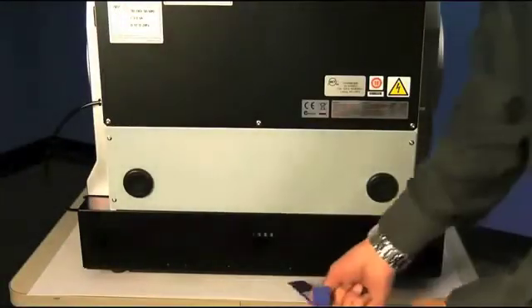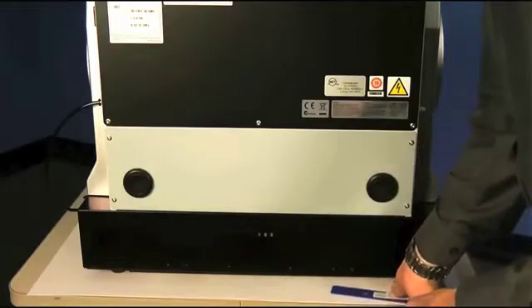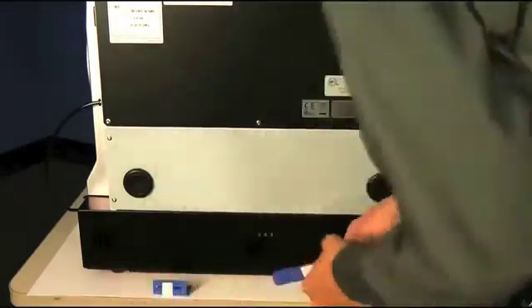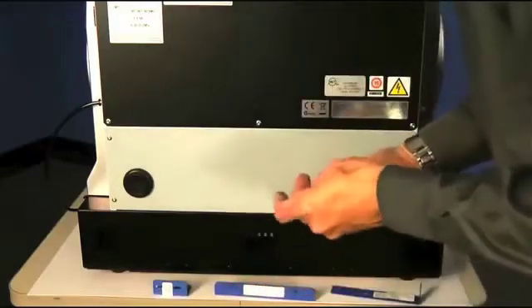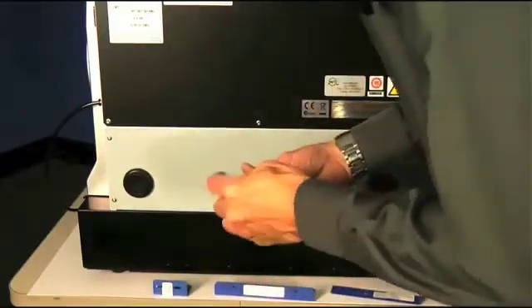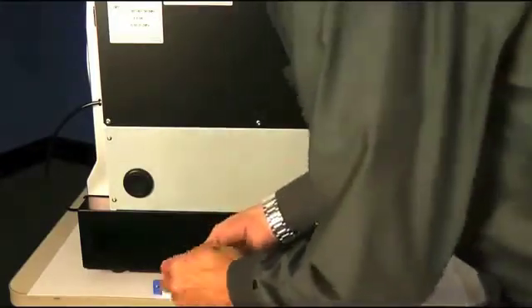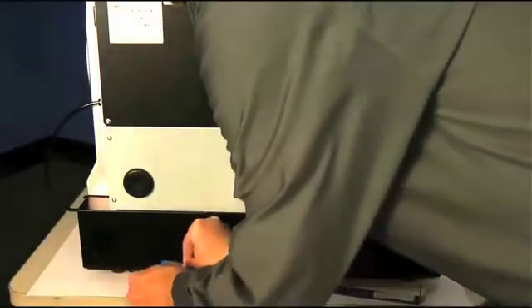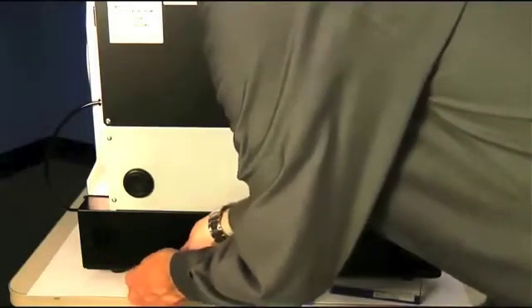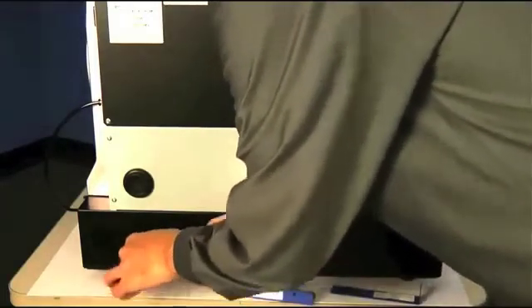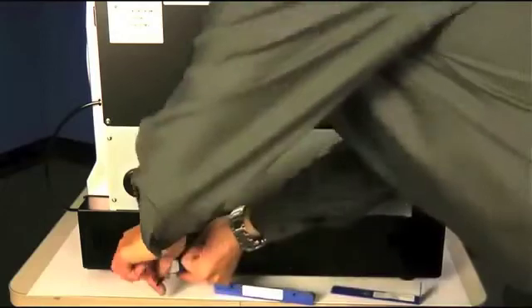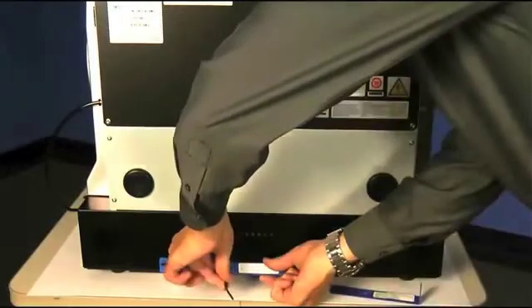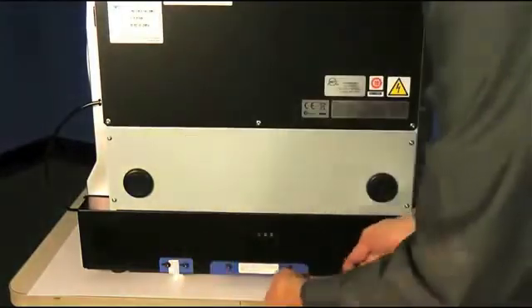It's very important not to misplace these shipping brackets. If you ever need to ship or move your unit to a new location, you will need to replace these into their original position holding the spindle and fixture in place. For easy storage, the lower rear panel of the DWX 50 has three separate slots that you will find for easy installation and storage of the shipping brackets when not in use.